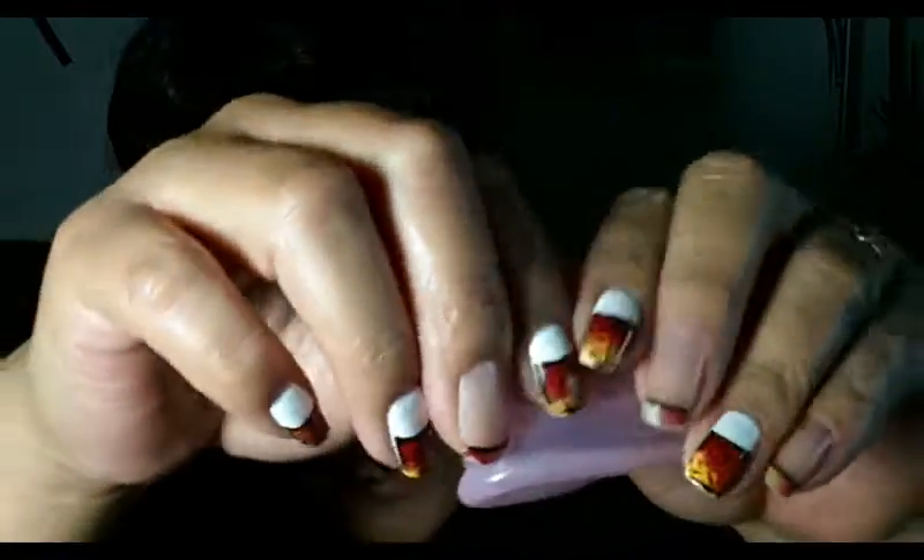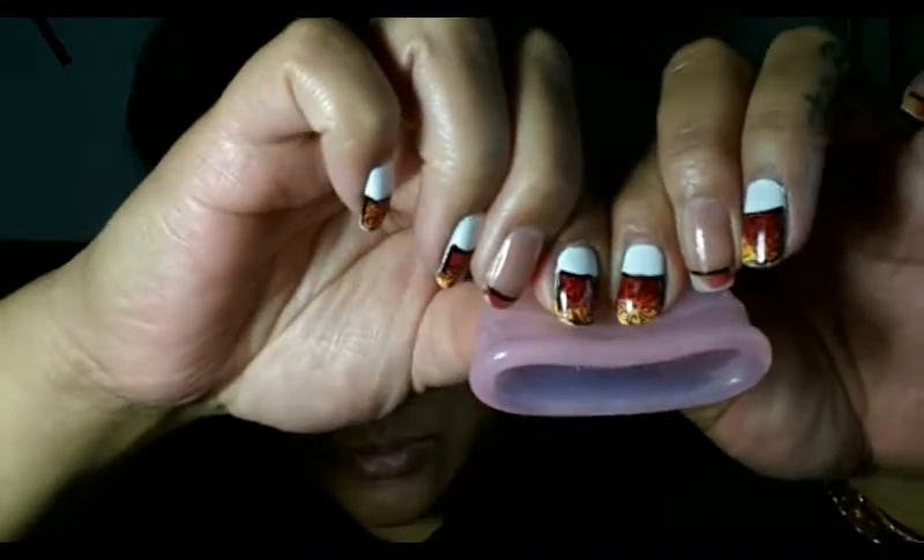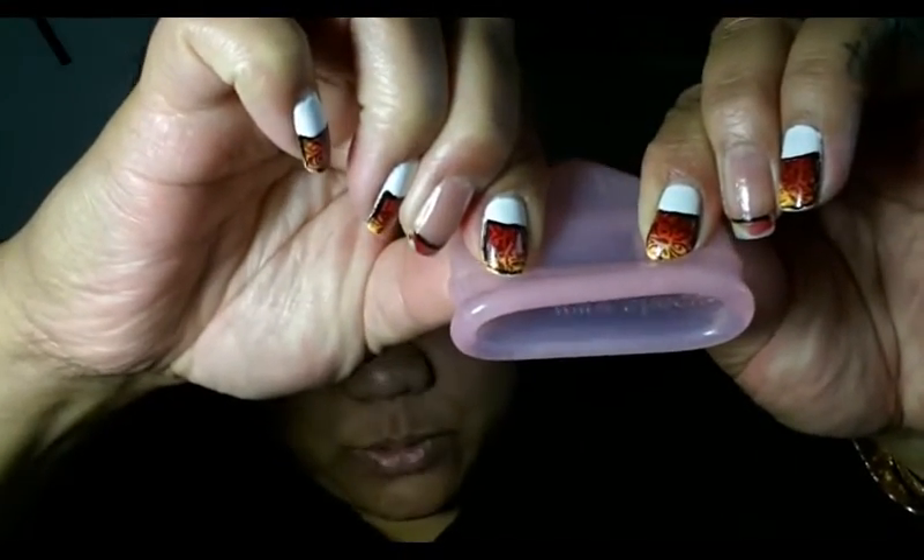So I think for people that are sensitive, those grip rings are really low-rise. They feel rounded off, so you shouldn't have big problems with feeling those. This part of the cup here is a little bit frosted-like. It has a little bit of grippiness — it's not a sticky silicone, but it does have some grip to it. So if I pinch my fingers down onto the cup and pull, my fingers slide but they're not sliding really fast off the cup like some of these other smoother cups. So it does have a good grippiness without having those grip rings.